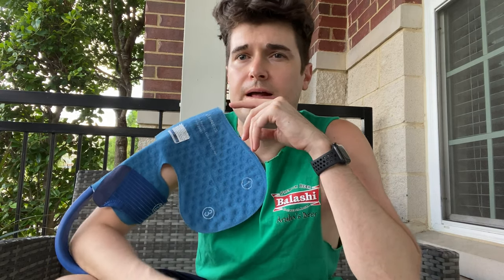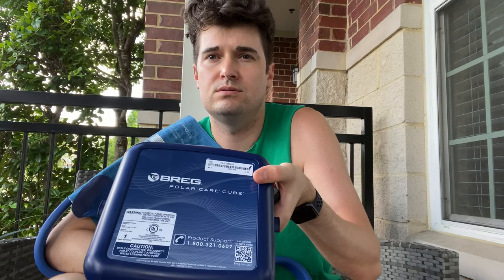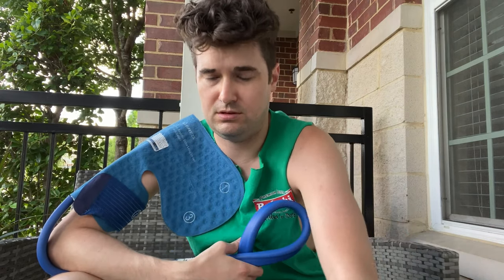I really haven't had any issues with this thing. And if you have some kind of shoulder surgery — even if it's not quite as intense as mine, maybe you're just getting an arthroscopy — I would recommend this. If you can get a hold of the unit or rent a unit, I know they do that too. But this thing has totally changed the game. Anybody else currently going through something like this, I would highly recommend the Breg Polar Care Cube.